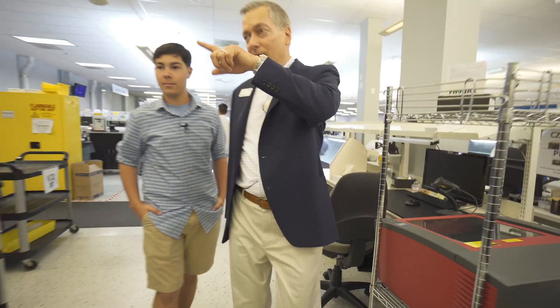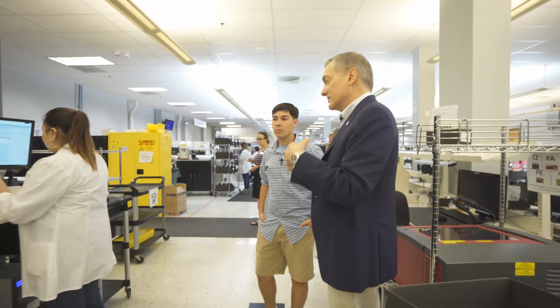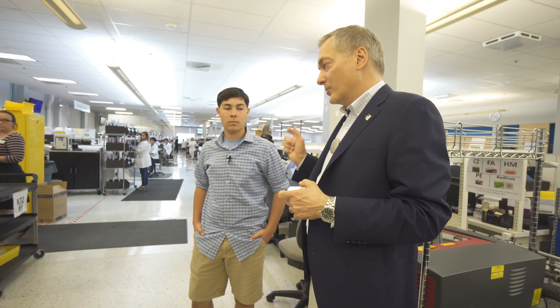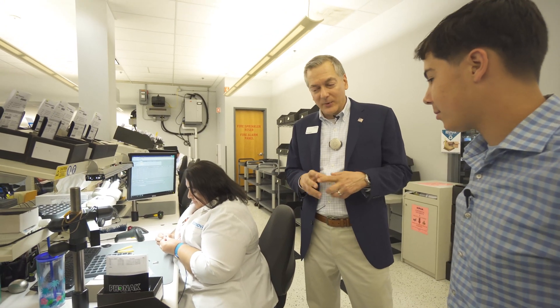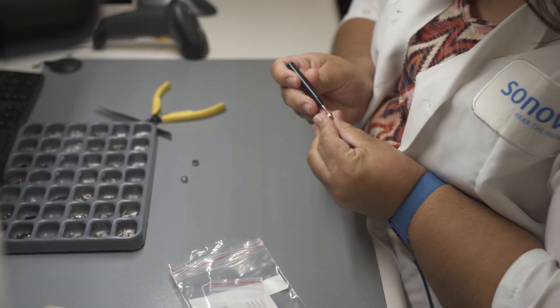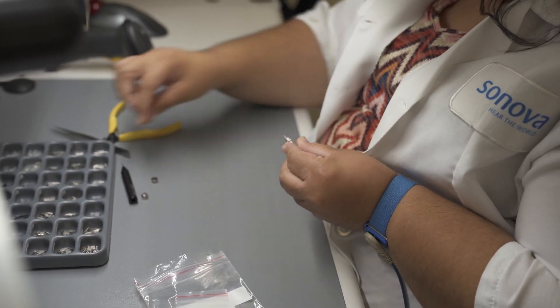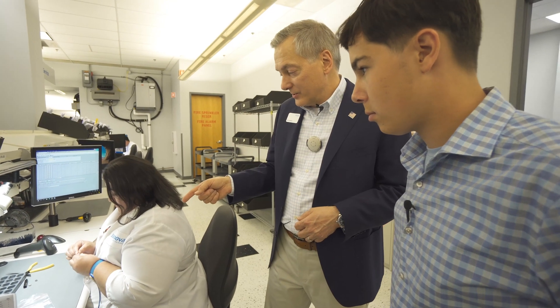All these yellow bins on the shelves are filled with hearing aid parts — microphones, receivers, face plates, all kinds of things. Each order takes a stop here so we can pick the parts that need to go with that order as it flows through, so when it gets to the technician they have everything they need. For RICs and BTEs, we don't manufacture them from scratch here, but we do final assembly — we get all the parts and pieces in little bags, with little screws and various components that our technicians put together.